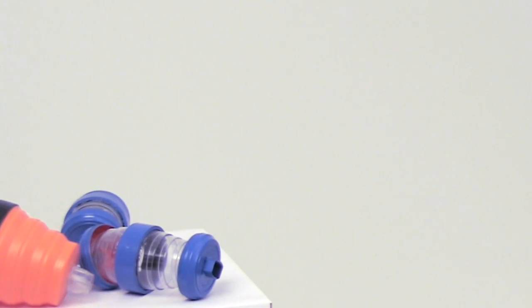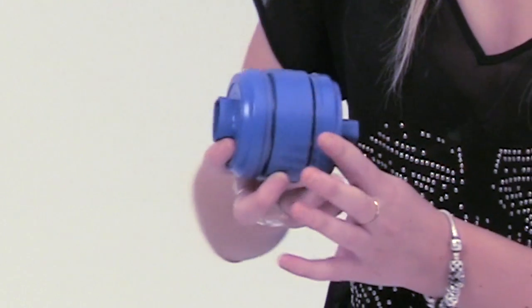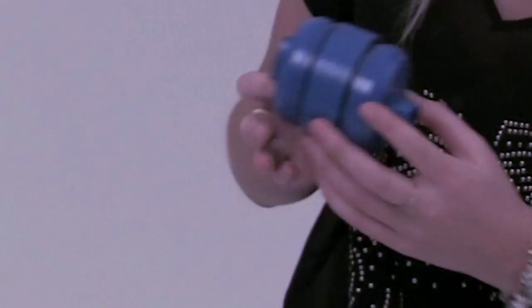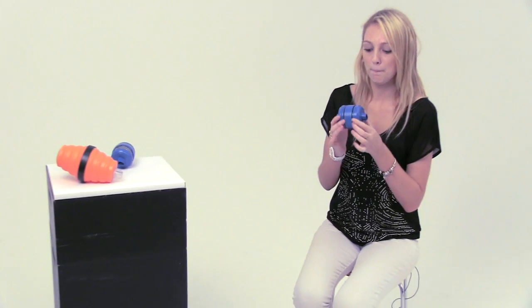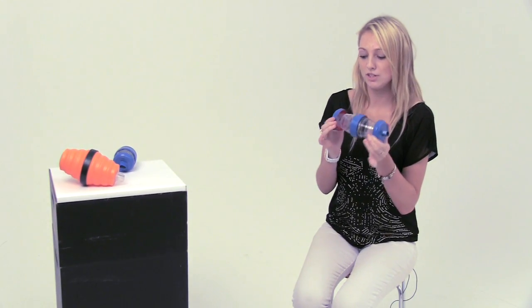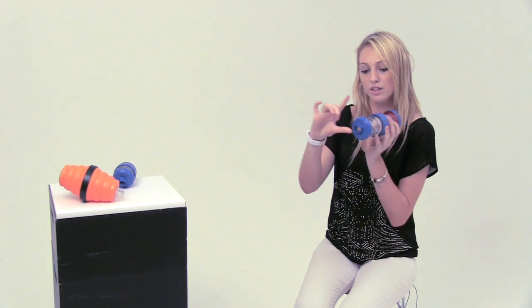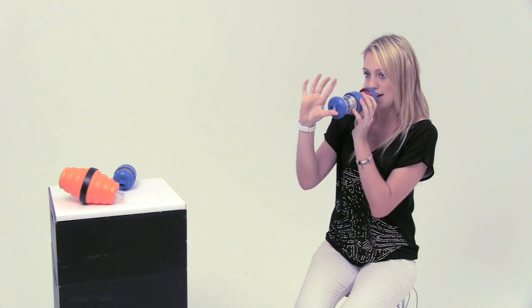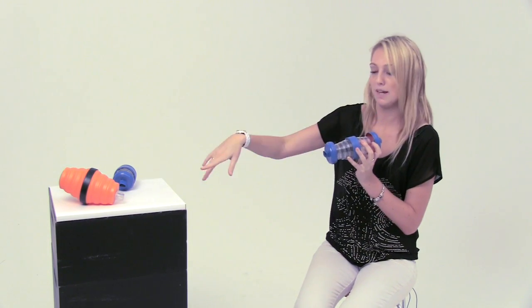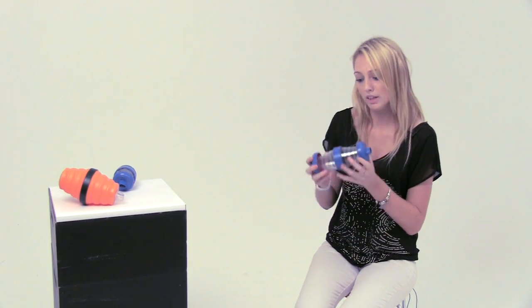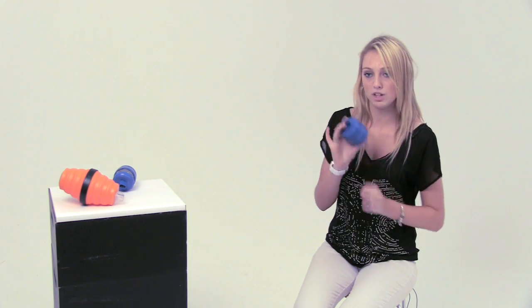The inspiration was that I have asthma and I never took my asthma spacer with me. So it's collapsed at the moment, but when you want to use it, you just open it and with your puffer, you put it in this end and breathe through this end. That's the same with the other one as well. Then they'll just collapse and you can put it in your bag.